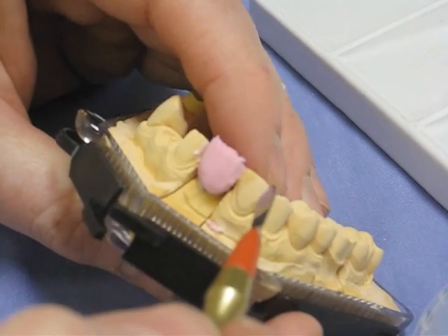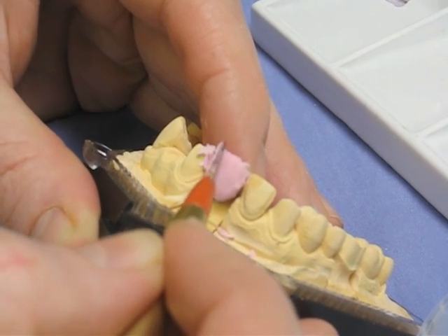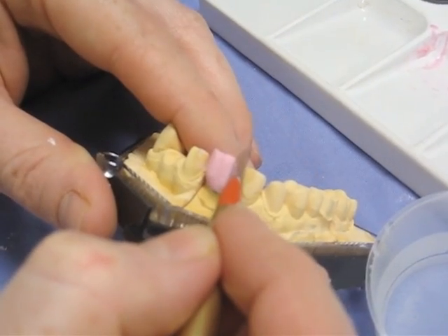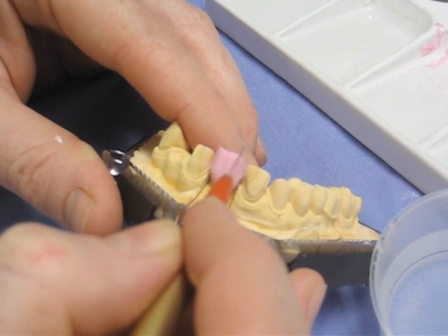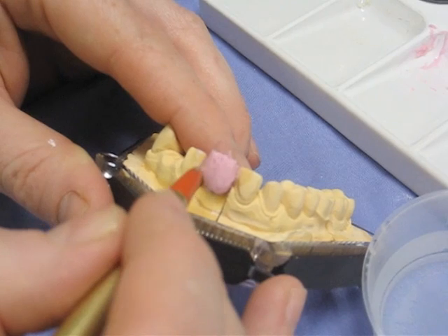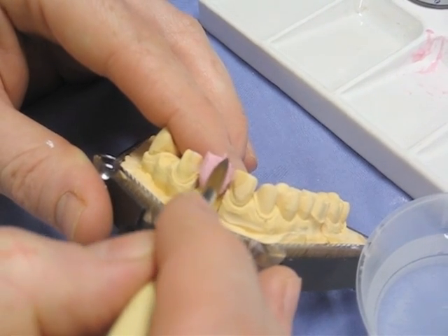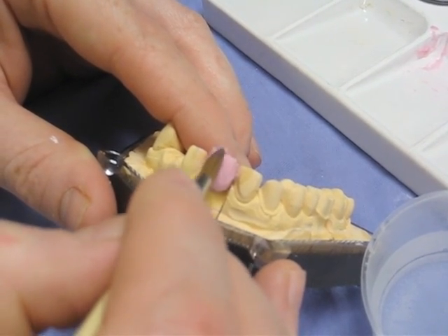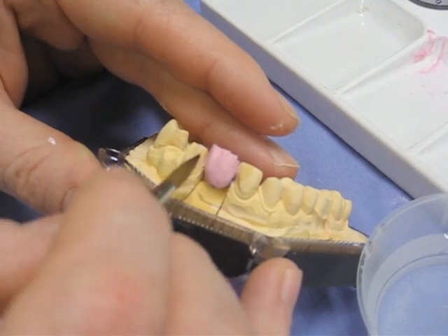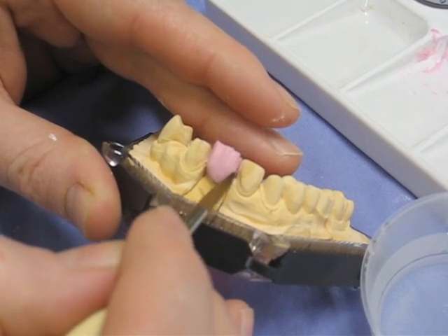This is the cut-back stage: you take away the material where you would like the more translucent enamel areas to be placed. By scratching a couple of grooves into the surface of the incisor we create the effect of mamelons — the dentine fronds through the tooth — leaving the mamelons and creating translucency in between them. A bit of fox's tail to smooth it out, then straight into otter's paw to smooth any bits off and define them — it's a bit of a hybrid, more of a fox's paw on that one.